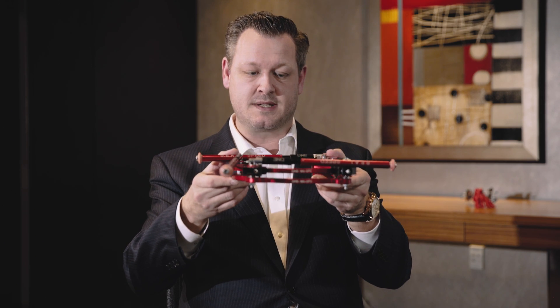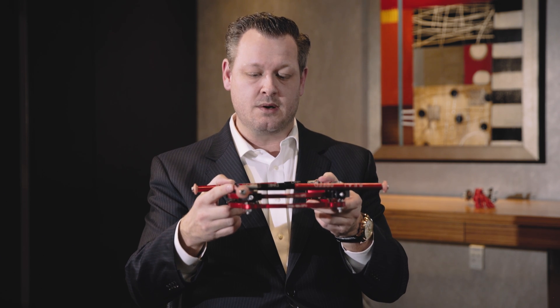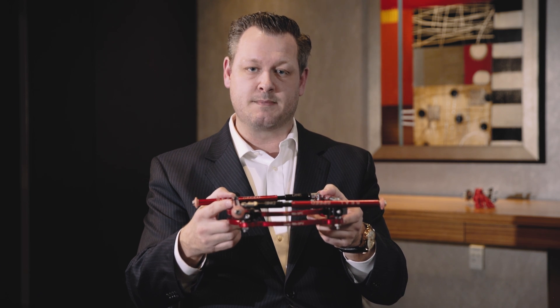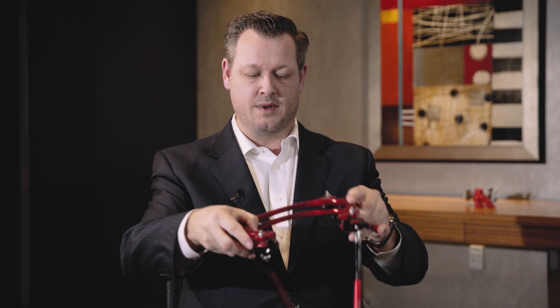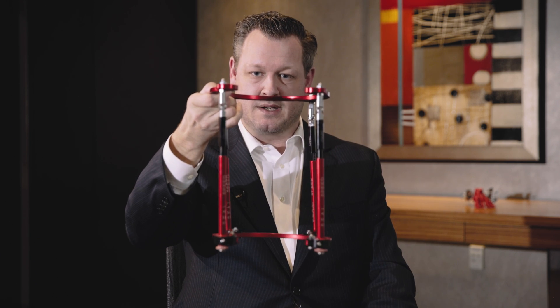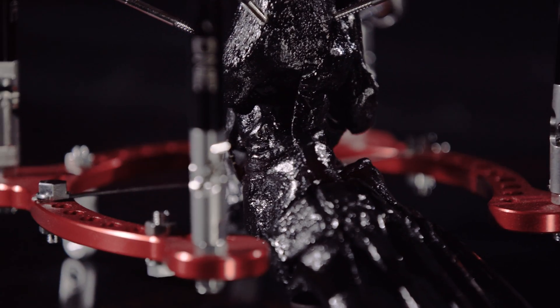The frame can come either pre-packaged and assembled or sitting on your hospital shelf. It also can be assembled in a custom format and sent to your hospital. When it comes out of the package in the OR, it is literally ready to go in a static construct or angular construct.